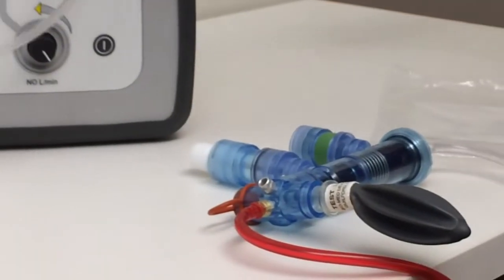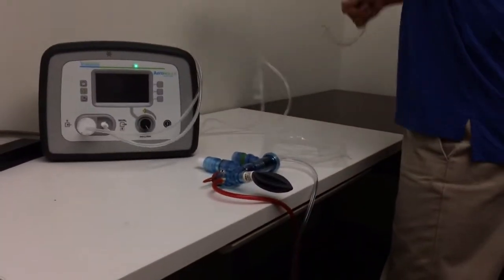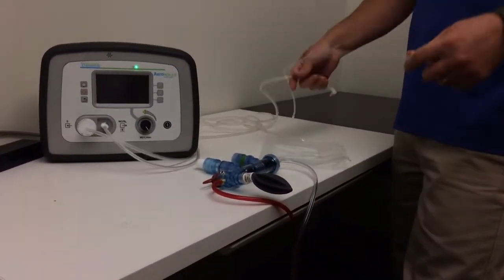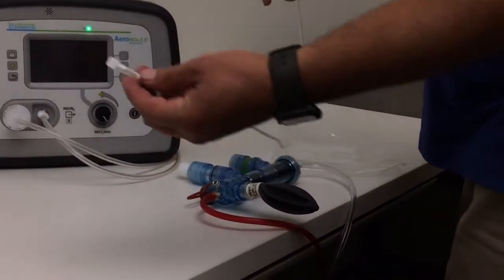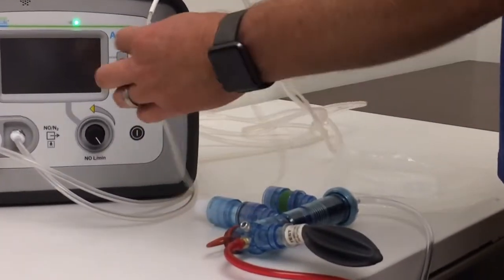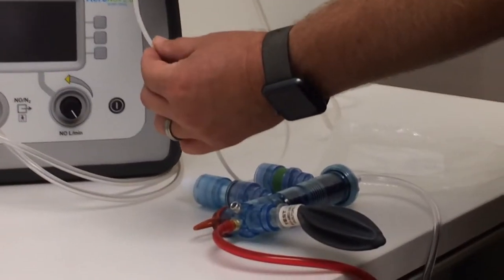We're going to follow these two tubes back. And you always want to sample closest to the patient. So, our sample line is going to have the drying, kind of the rough-feeling tube on the end.